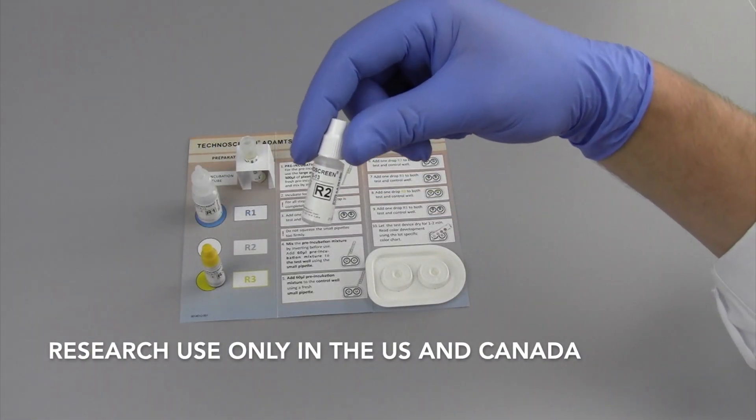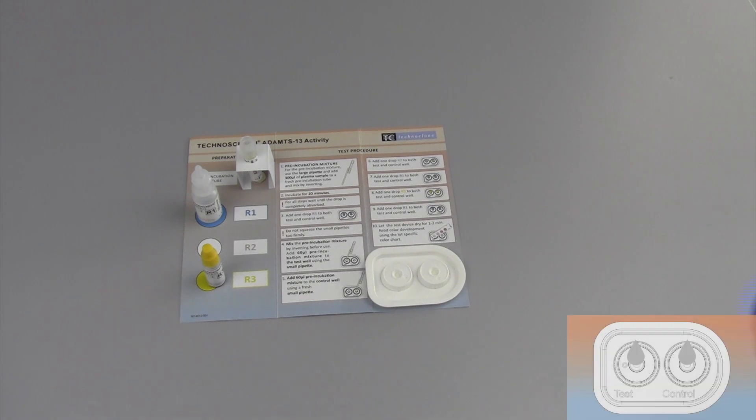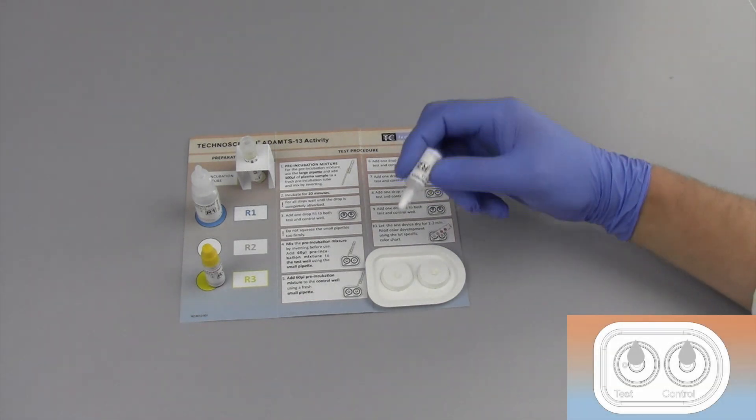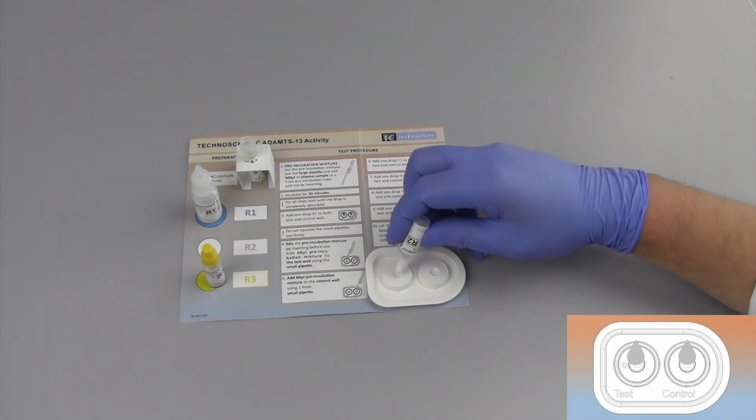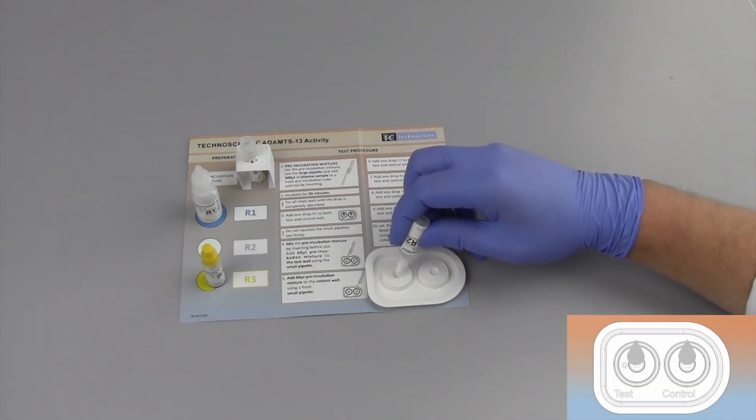Now we continue with step 6. Add one drop of Reagent 2 to both test and control well.